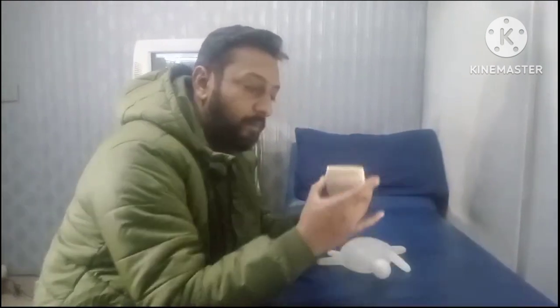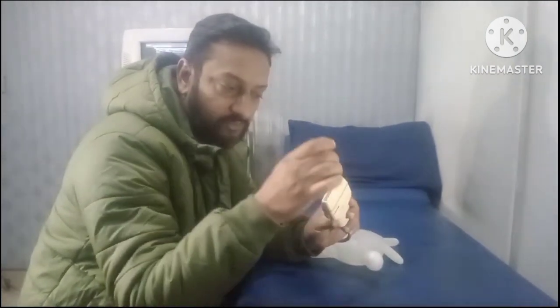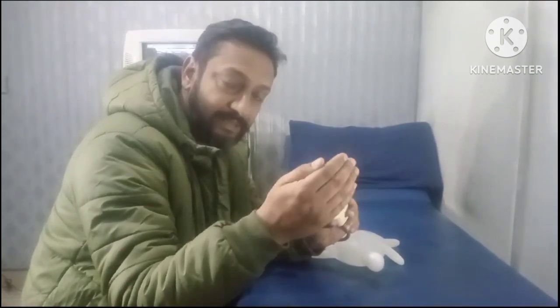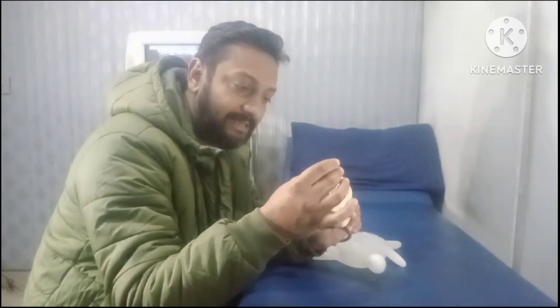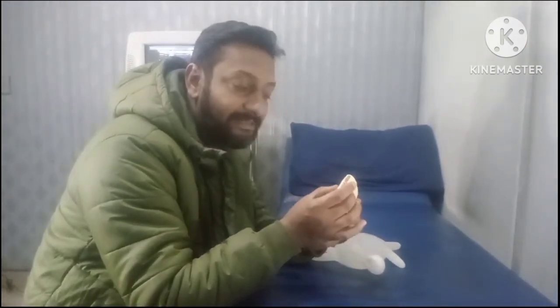This is my probe. This transmits sound. Sound exits from here, enters the body, and then it is attenuated — it changes its structural characteristics — and then it comes back to this probe. When the sound is coming back to this probe, it creates an image on the ultrasound machine.